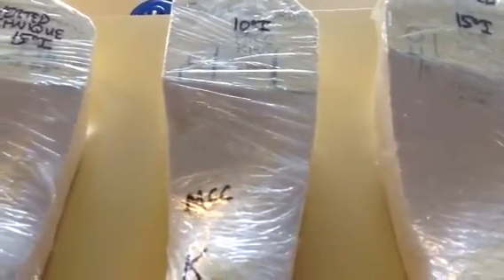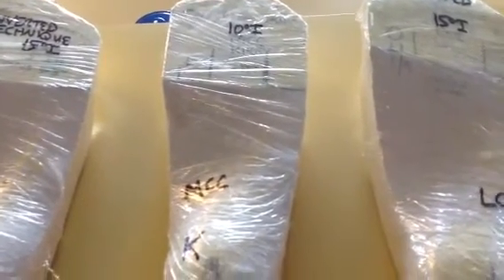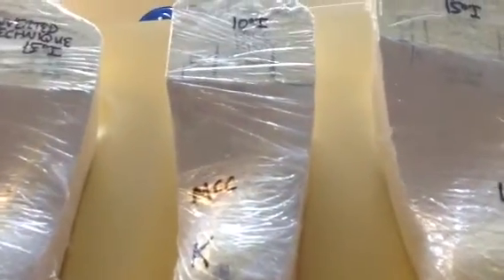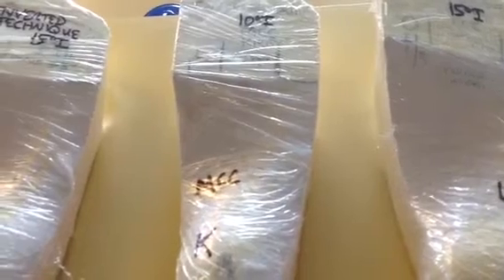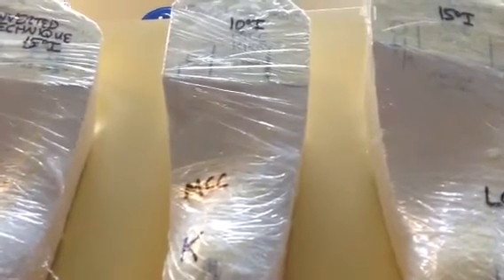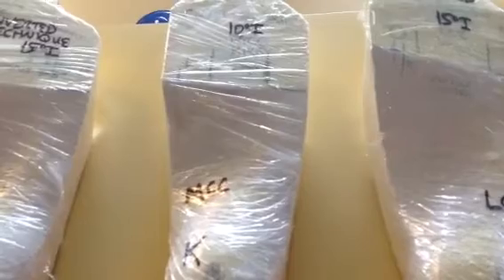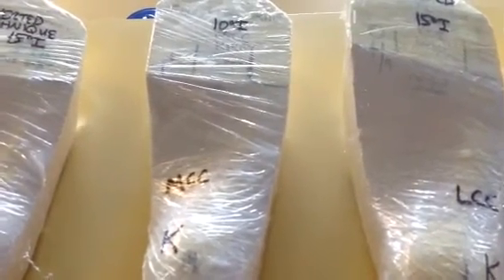Here's probably the highest modified root orthotic, poured at ten degrees inverted. You use this for forefoot varus over ten degrees, then add the medial column correction and medial Kirby to give greater support — up to about 13 degrees of support. For activities like running, a runner can have 20 degrees of pronation at heel contact, so these techniques are extremely good for that.